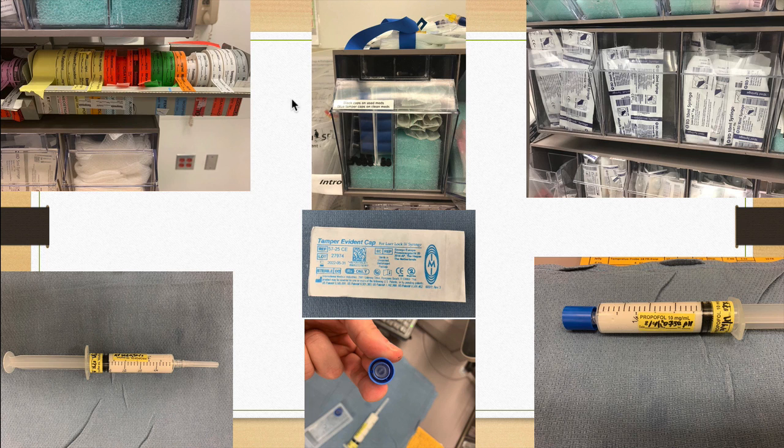That's that. Okay. Last thing to mention about drawing up drugs is you always want to label your drugs, and we have quite a few preformed labels for a variety of drugs here at UCLA. Of course, each one of those requires the concentration of the drug, if not already stated, as well as the date and time and the initials of who drew it up. The syringes and the needle tips to draw these drugs up can be found right above the Pyxis. However, we implement one more step in safety here at UCLA, which are these little blue caps. Blue caps can be found in the upper left corner of the Pyxis, or right above the Pyxis.